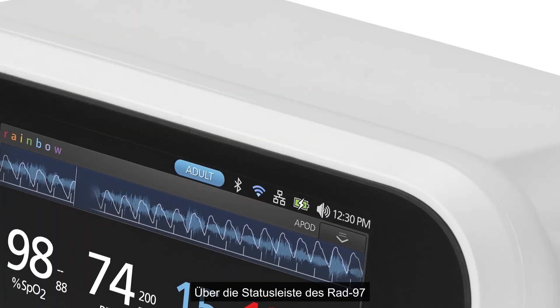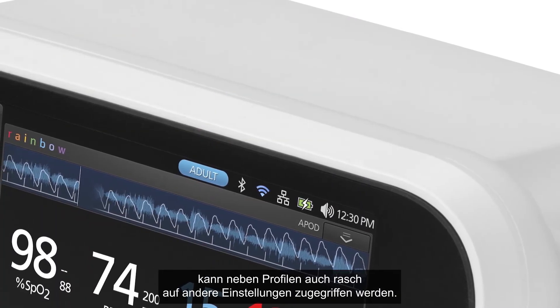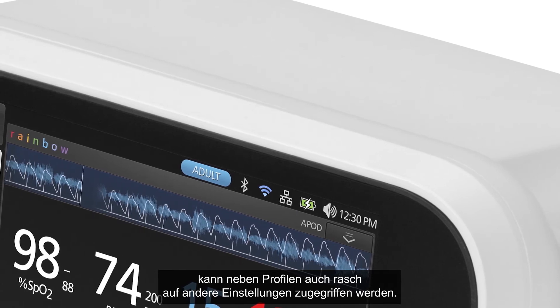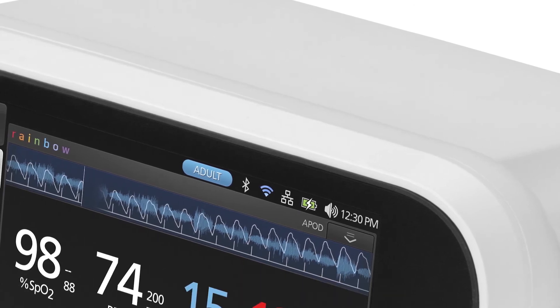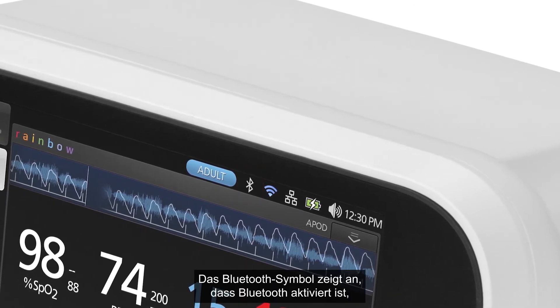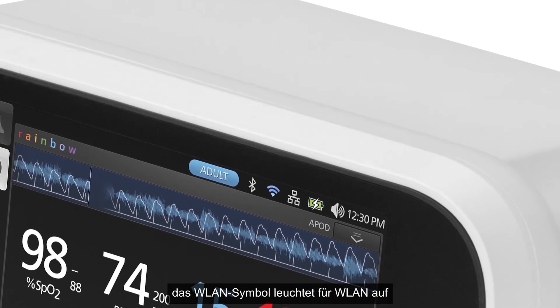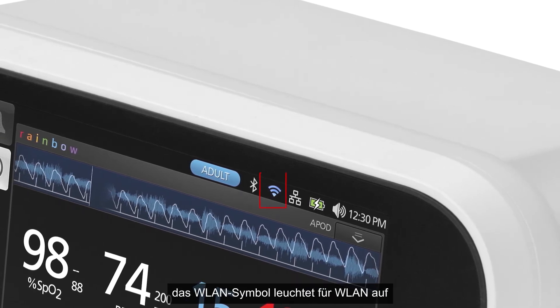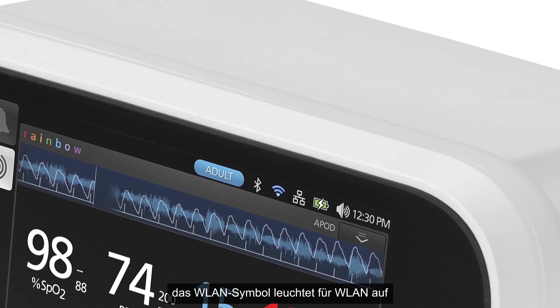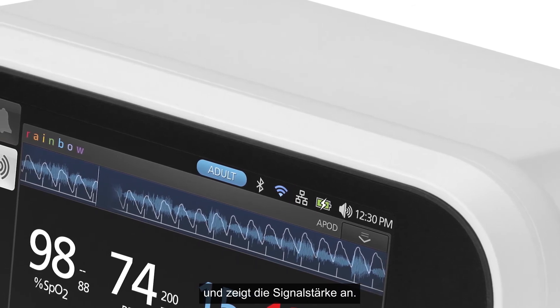In addition to profiles, the status bar on RAD97 allows quick access to other settings. The Bluetooth icon indicates that Bluetooth connectivity is enabled, while the Wi-Fi icon indicates that Wi-Fi connectivity is enabled and displays signal strength.